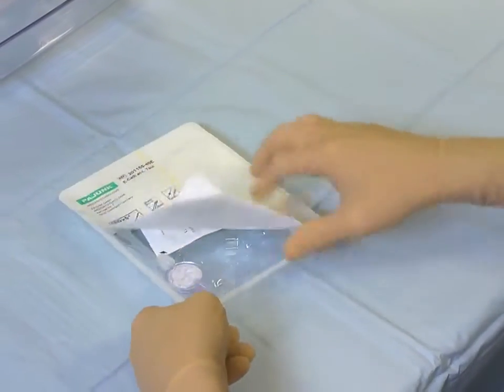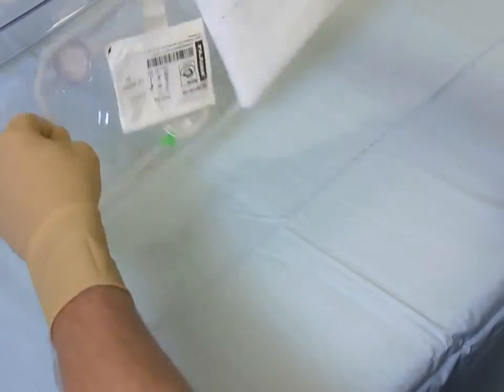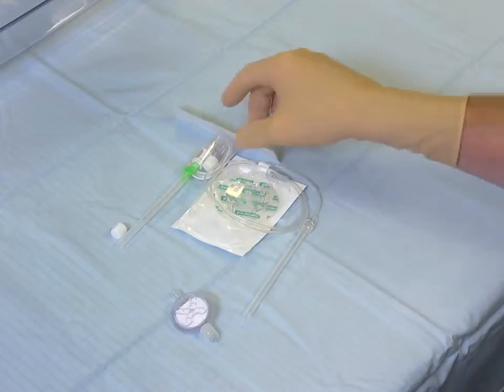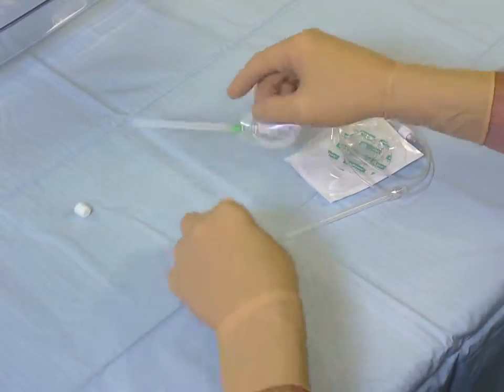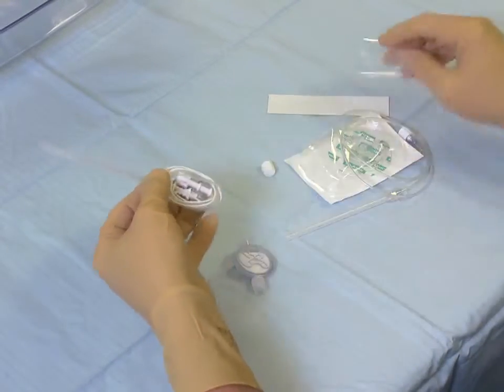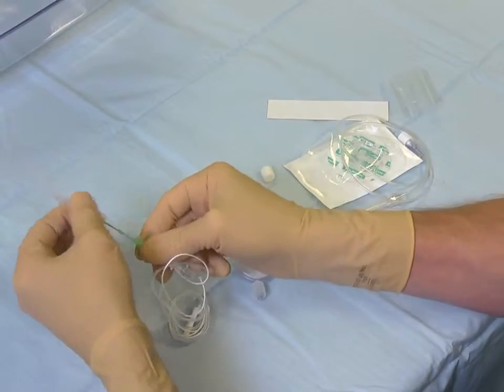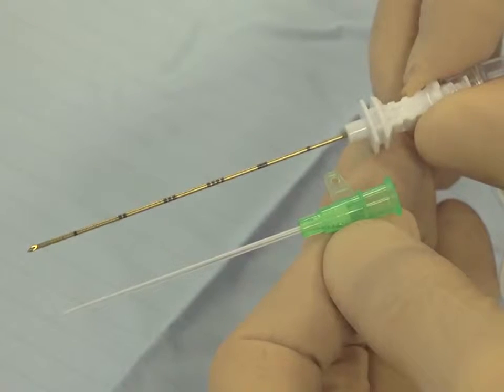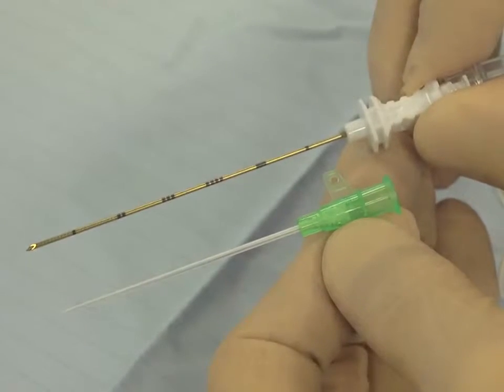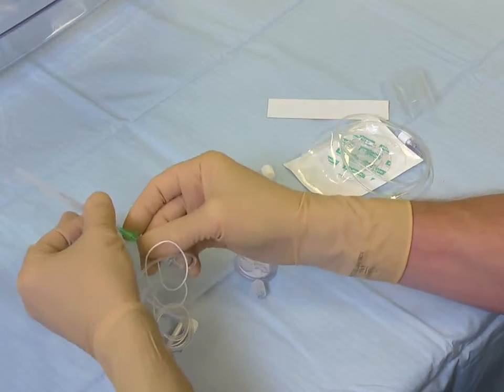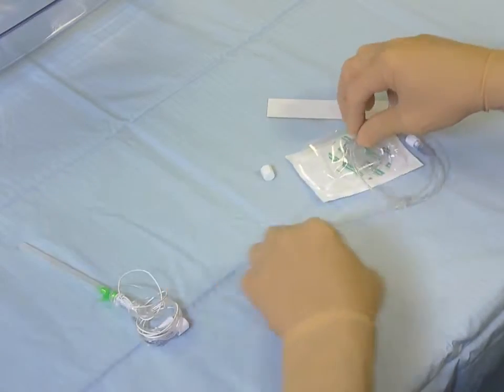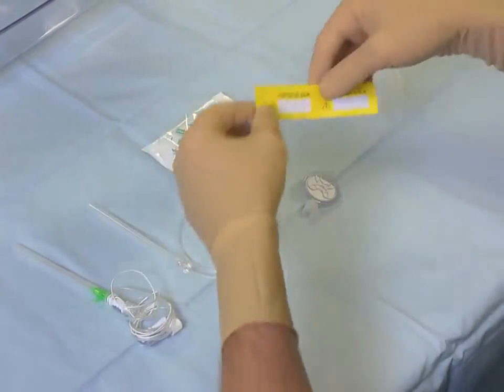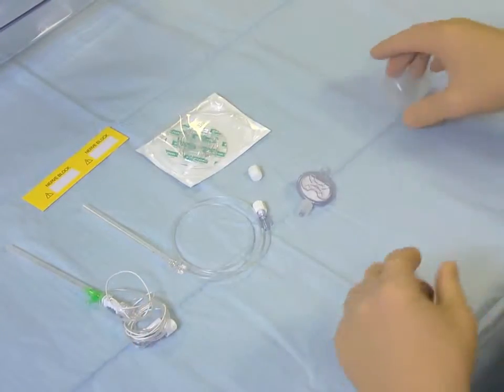Open your packaging onto a sterile environment and check all of the products. The needle and sheath are packaged pre-assembled. You will notice that the needle is the conventional Pajunk Sonoplex needle with cornerstone technology. The E-Cath, the filter, the fix-along, and a nerve block identification label.